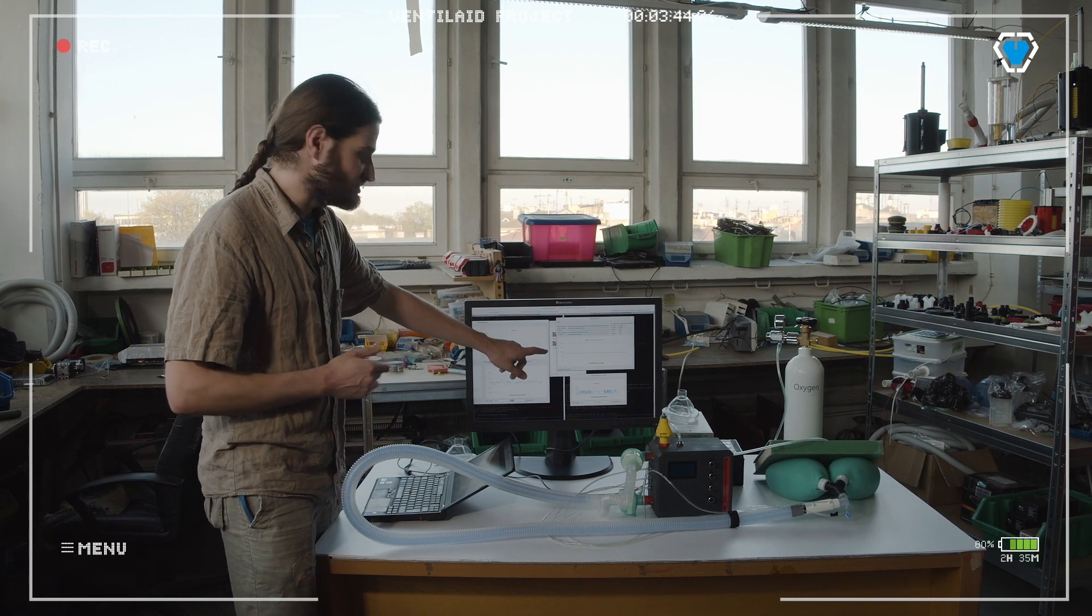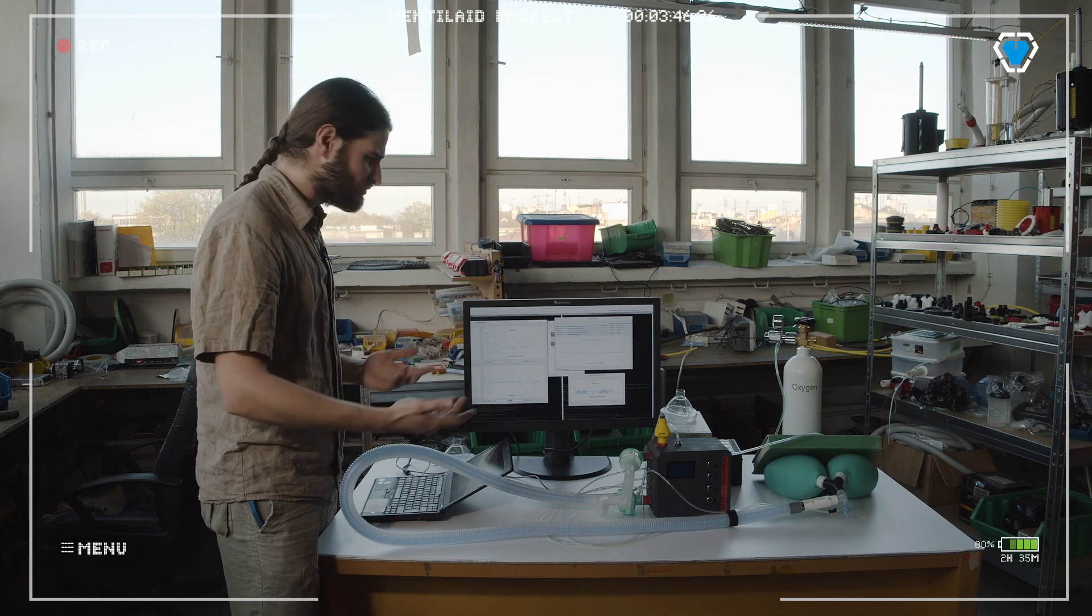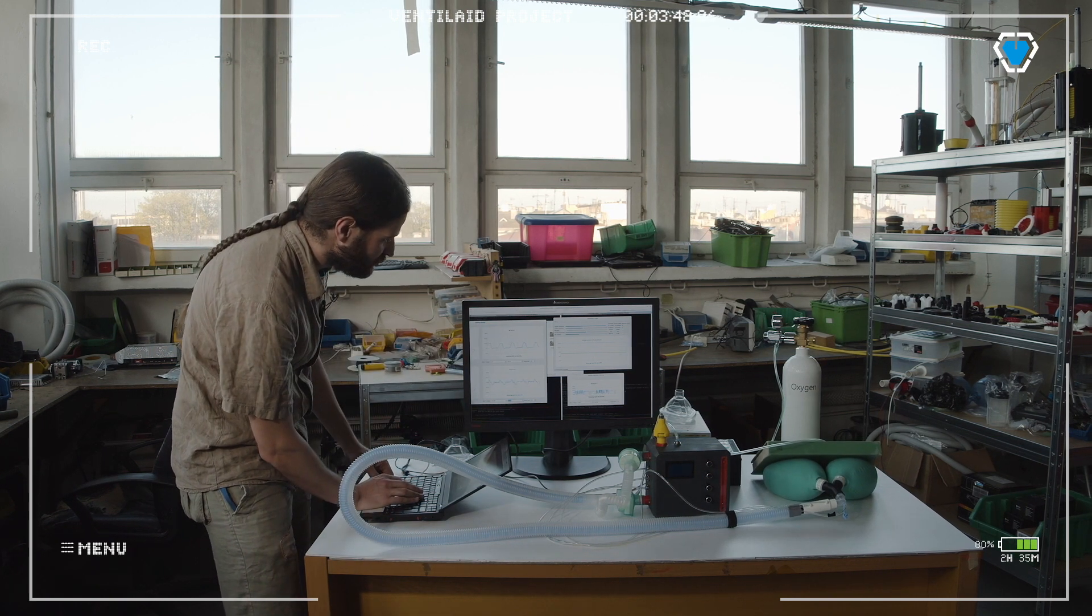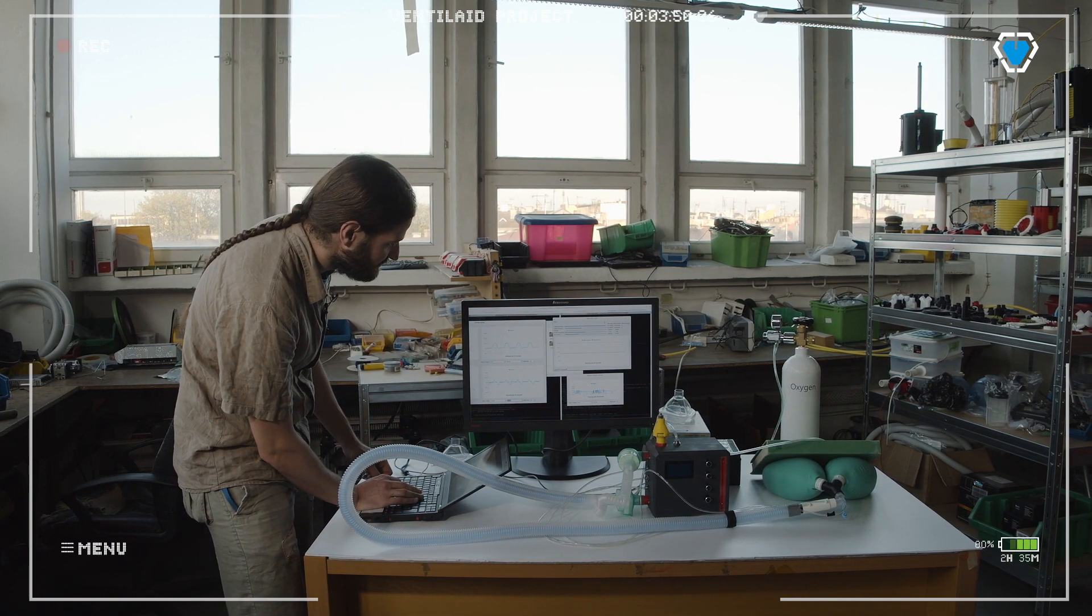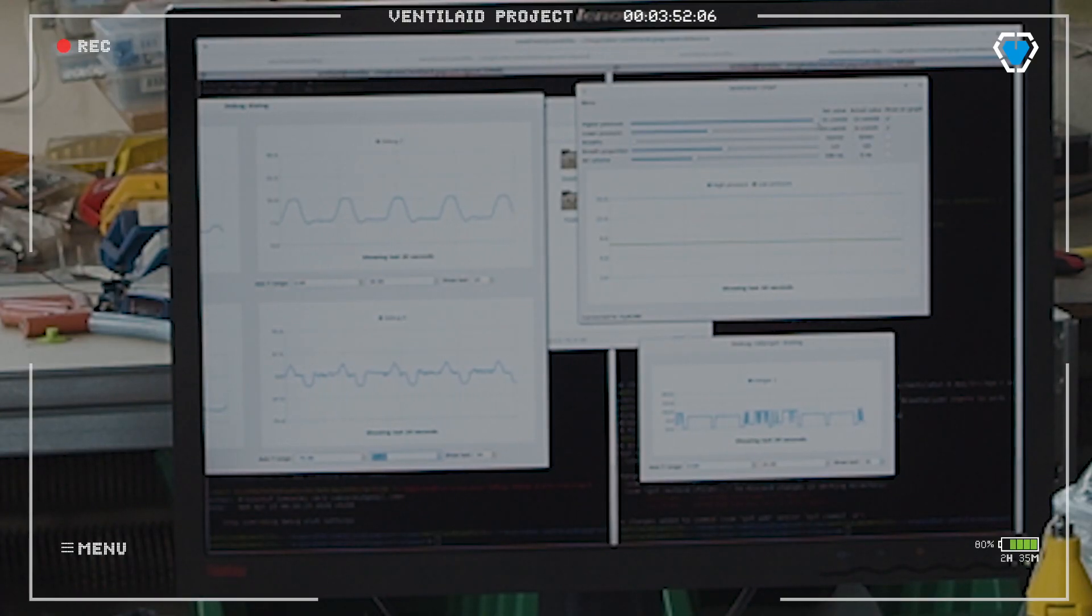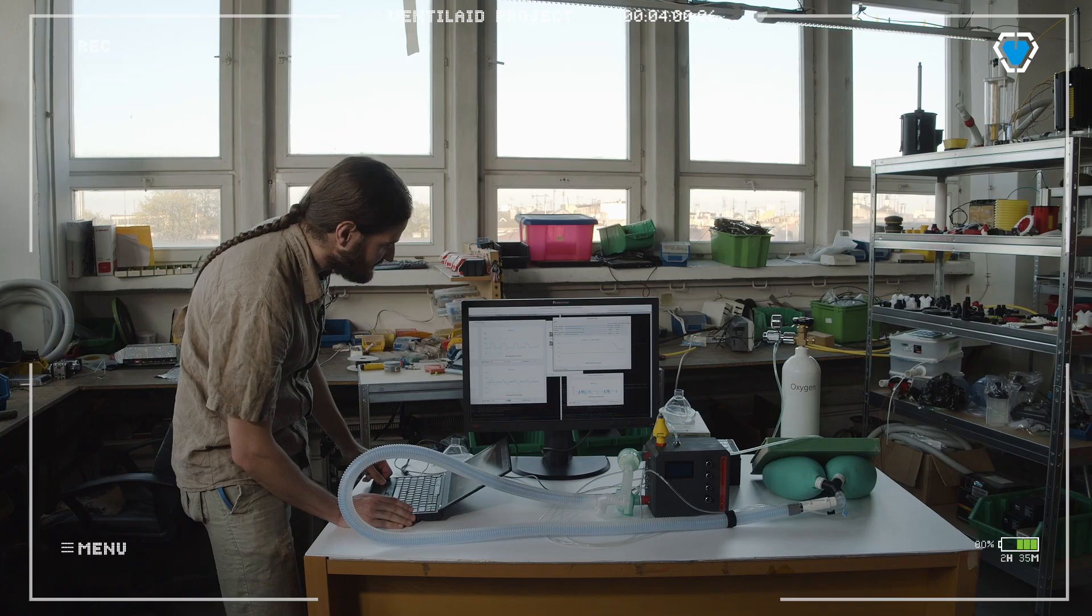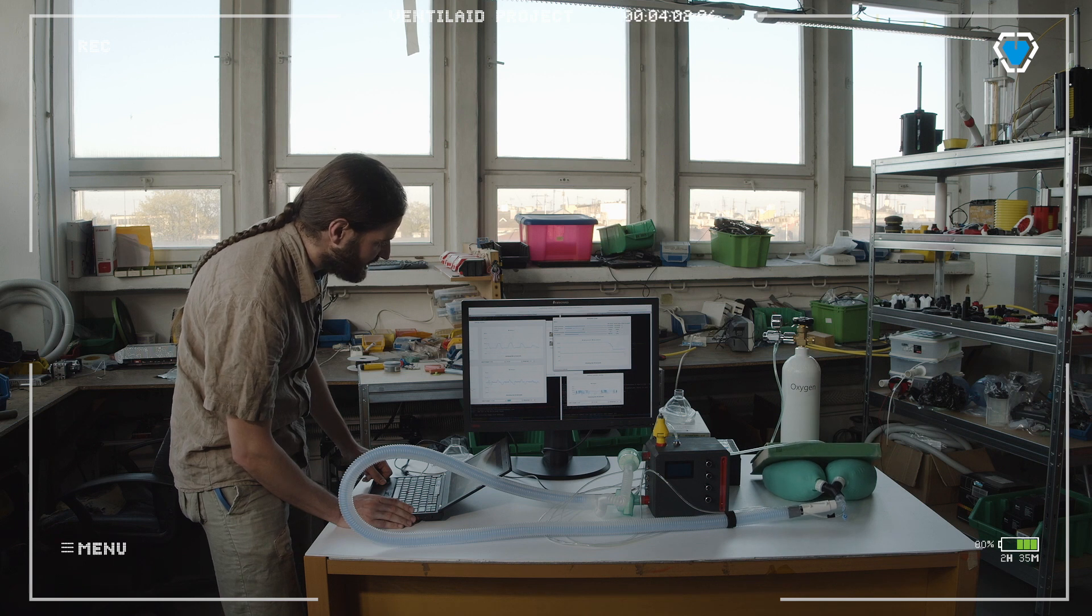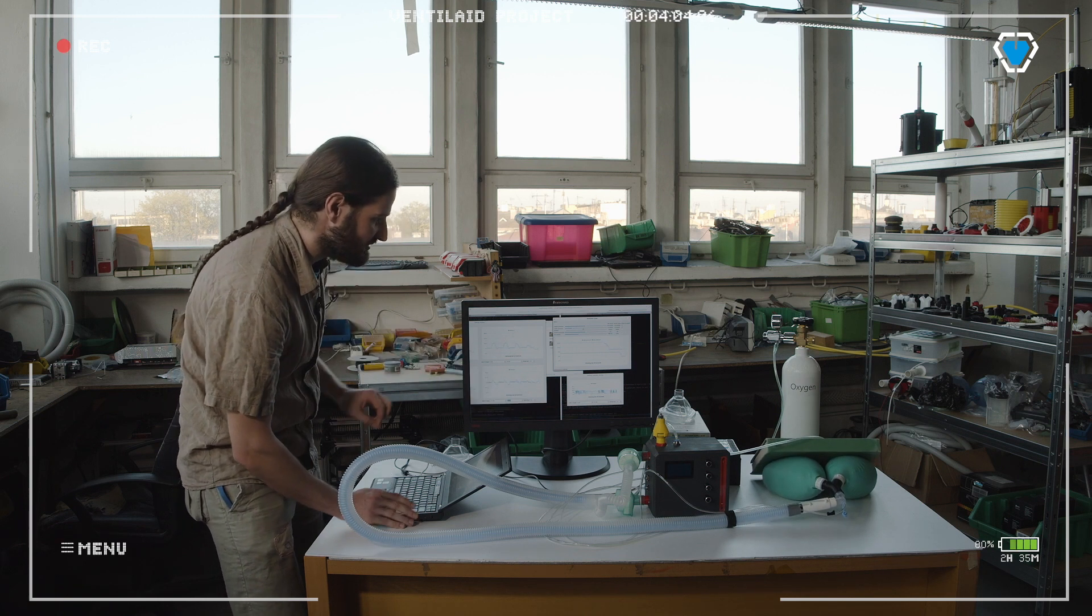Then you have another pressure which is sustained for the exhale. You could be choosing to breathe with lower or higher pressures. You're going to see me now just changing high pressure to lower values. The lungs are going to be moving a little bit less, as you see. We could also change the lower pressure to even lower values.